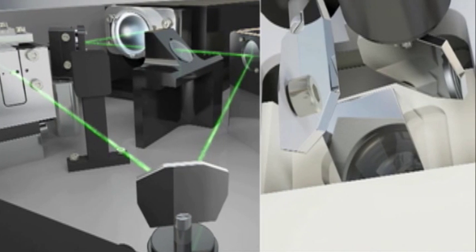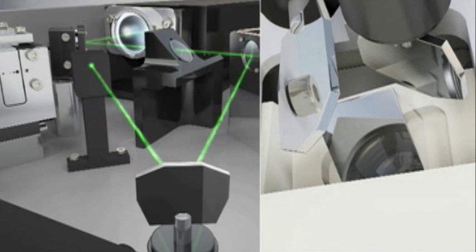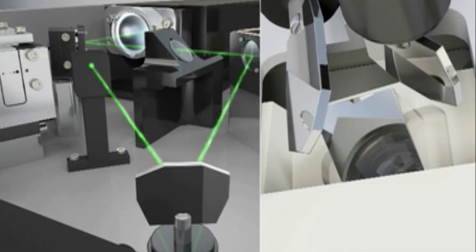This pulse travels through the fiber-optic cable to the slit lamp, where PASCAL uses two additional galvo mirrors to deliver the pulse from the fiber to the retina. While the galvo in the laser console is directing the beam away from the fiber, the two slit-lamp galvos move into position for the next pulse in the pattern.